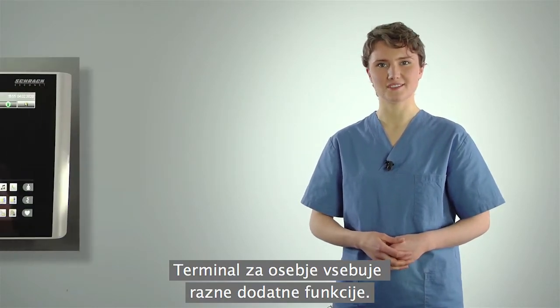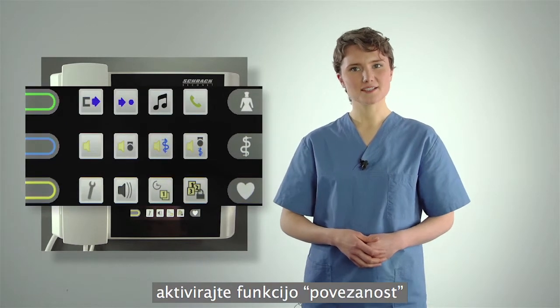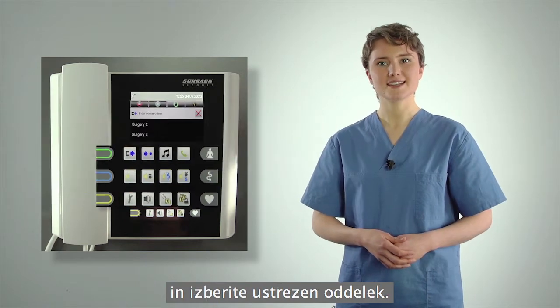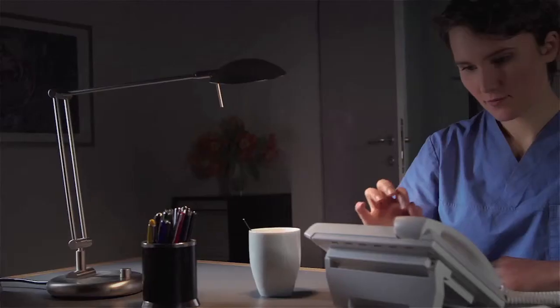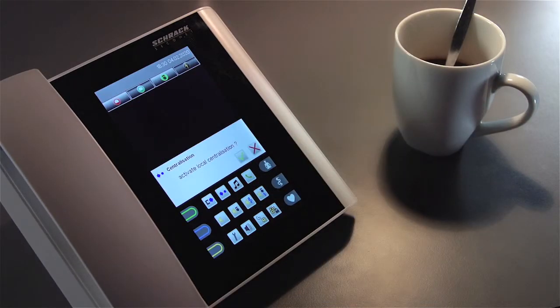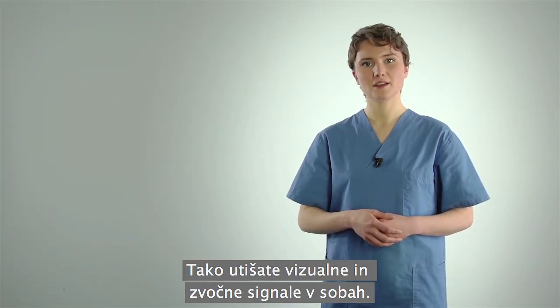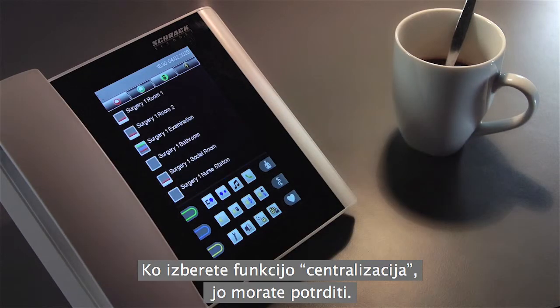The staff terminal offers some useful additional special functions. To manage the calls of a neighboring ward, activate the interconnection function by pressing the button and then select the desired ward from the list above. During the quiet night hours, you can activate the centralization function. This silences the optical and acoustic call displays in the rooms. Please confirm the centralization function after selecting it.